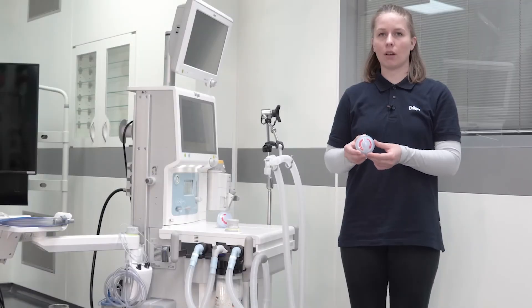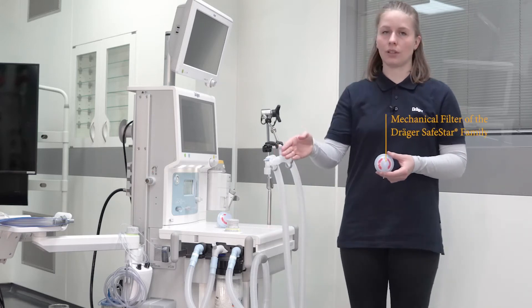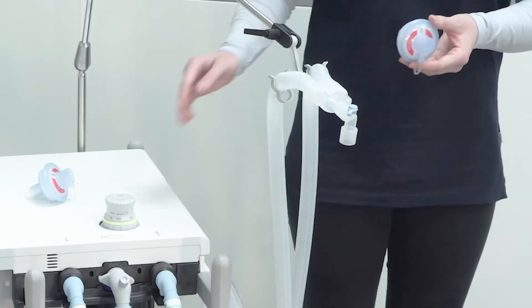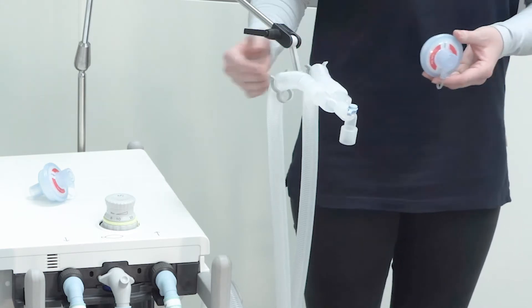This is a recommendation for a filter setup with enhanced safety, additionally to the IFU. Make sure that you use the right filter and hose setup for each patient category. It is mandatory to always have a mechanical filter in between the device and the patient. This mechanical filter avoids the transfer of bacteria and viruses from the device to the patient or from the patient to the device.